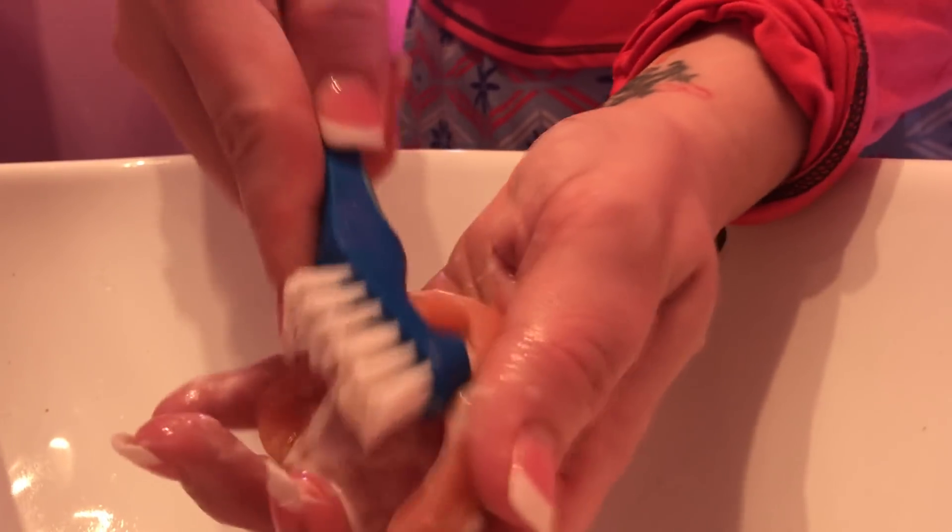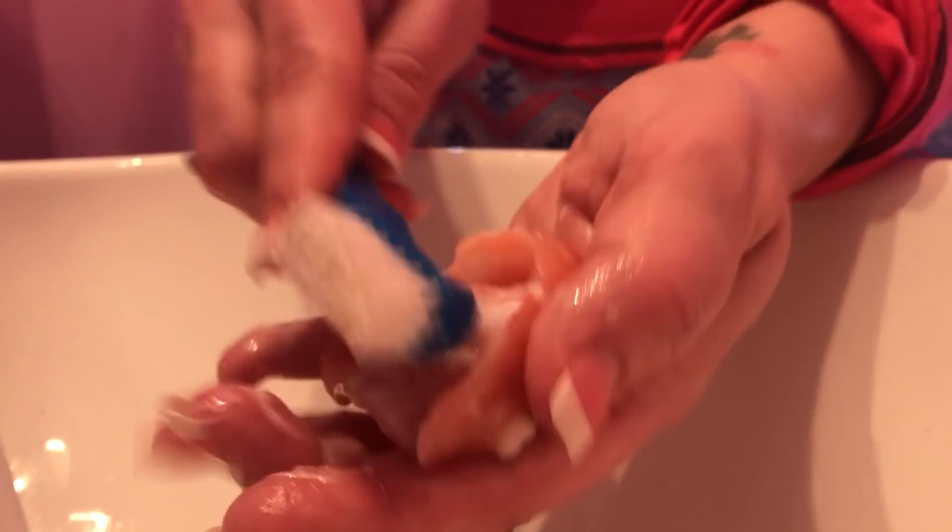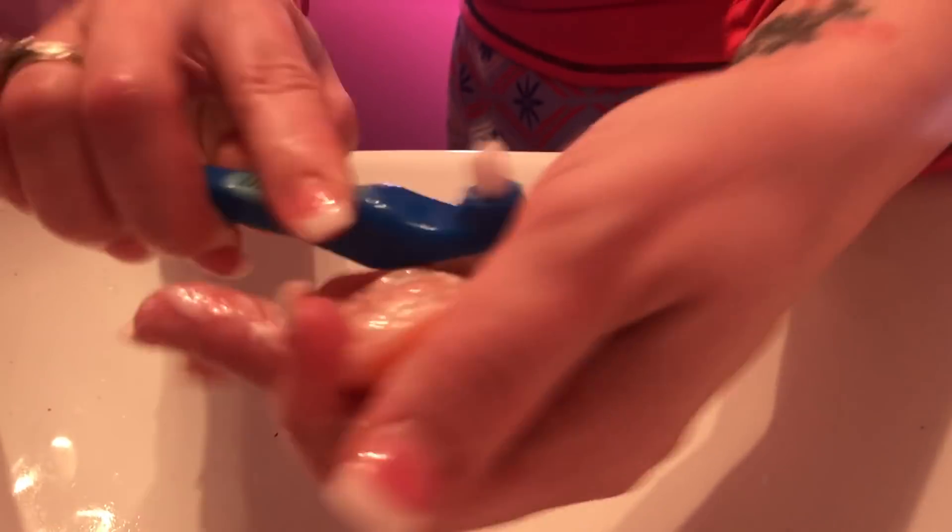Sometimes it's hard to get inside this little divot right here, but I use this little tool — I wish it was a little longer. I already cleaned this one, so I'm not going to do a long cleaning on this. I was like, oh, I can make a video.